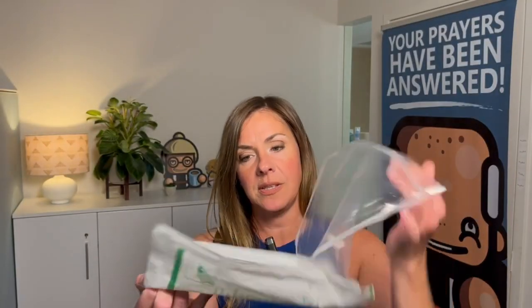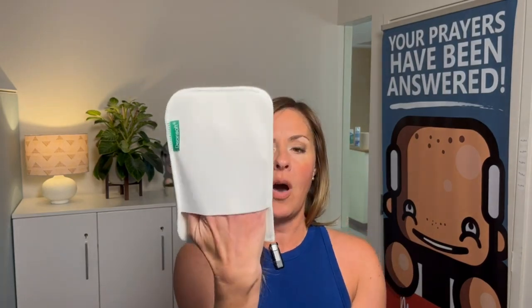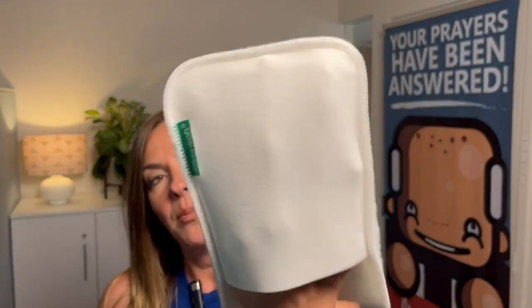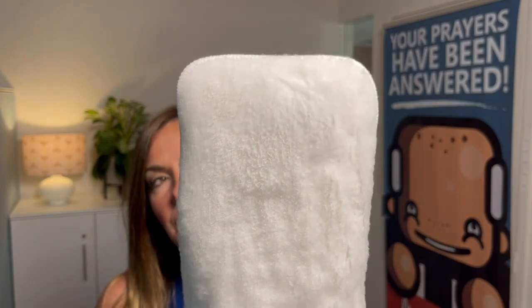This is our larger 5x8, and the nice thing about this is it's actually got a built-in mitt on the back, so I don't even have to touch this pad. Everything stays sterile. This pad is 100% polyester fibers. They are beveled, and that's so they get good grip down there into the wound bed.